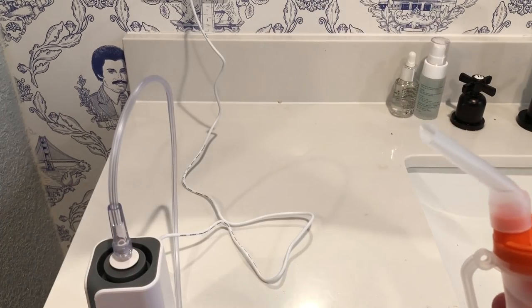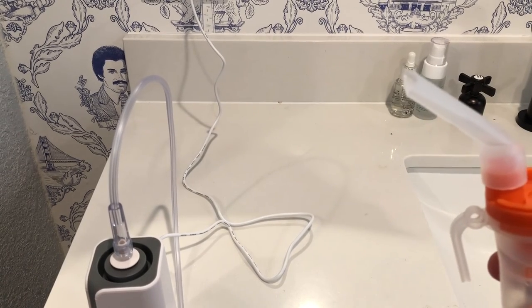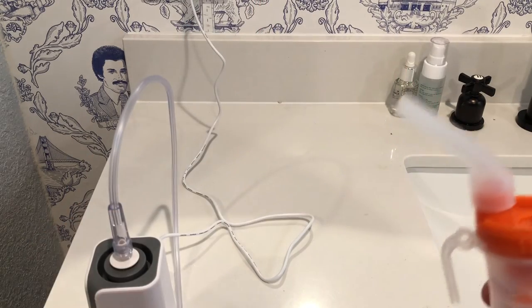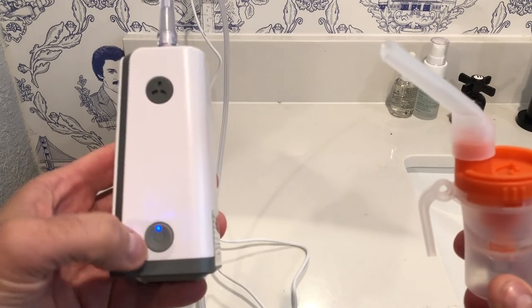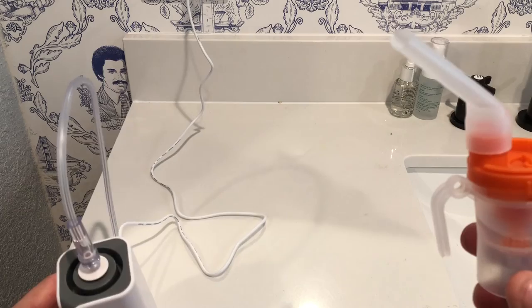There you go — you can kind of see it a little bit. It mixes pretty well and goes really smoothly. It's not that loud for a nebulizer. To turn it off, just push the button again — long press — and that turns off the unit.